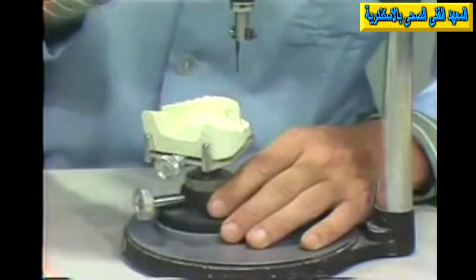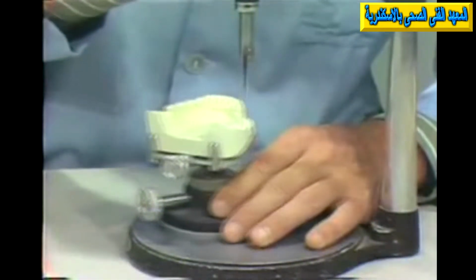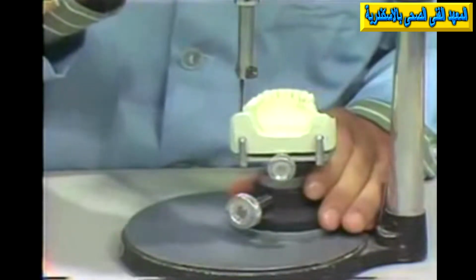Also, do we have in certain areas, such as the buccal of our bicuspid in this area and the buccal surface of our molar on the opposite side, do we have retention? That is a small undercut in this area that we could utilize with a part of the clasp arm for purposes of holding this prosthesis in place once it is seated.